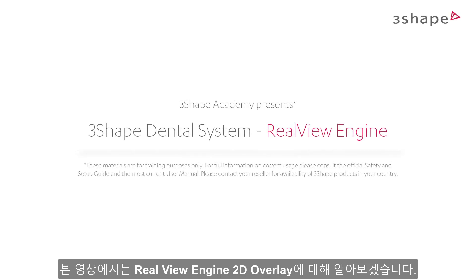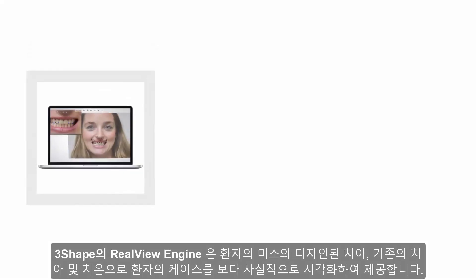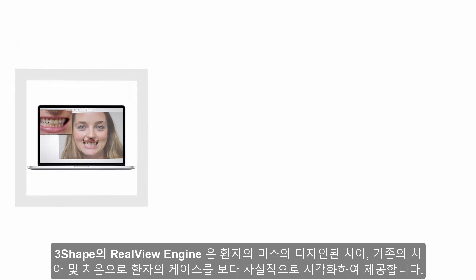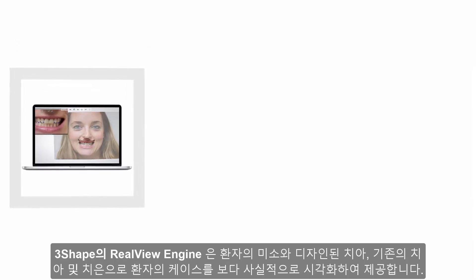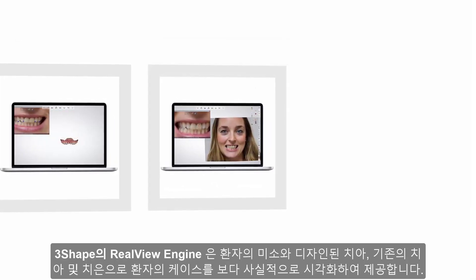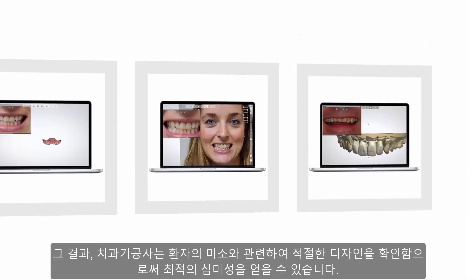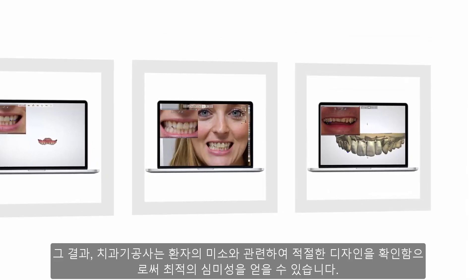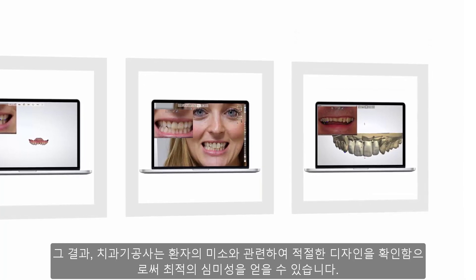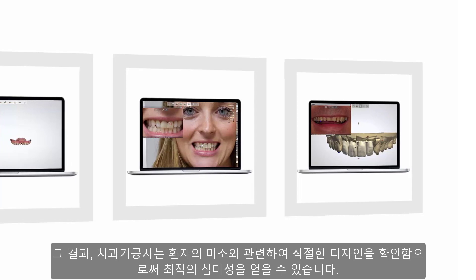In this video you will learn how to use the RealView Engine 2D overlay. 3Shape's RealView Engine provides a near photorealistic visualization of the patient case that brings together the patient's smile, the design teeth, the existing teeth, and the gingiva. The result allows the technician to verify the design in relation to the patient's smile and thereby achieve optimal aesthetics.